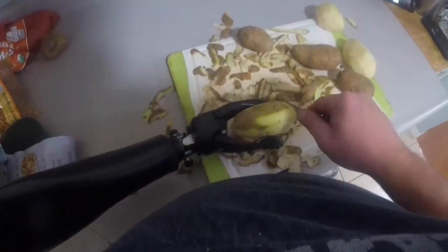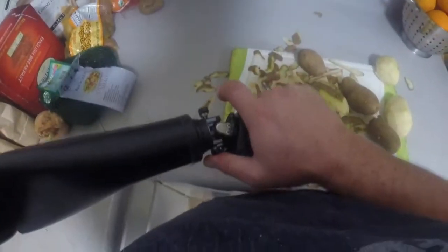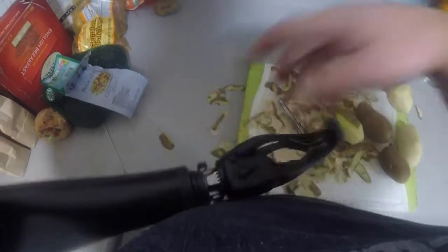This tiny device was installed into my electric arm along with 17 sensors that now read my new muscle patterns in real time. It then conveys and converts those signals through an algorithm and software which translates that into movement.